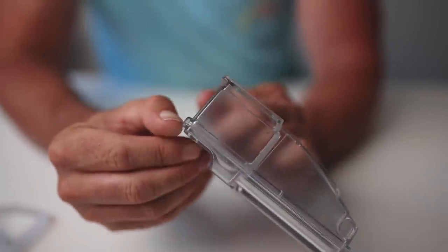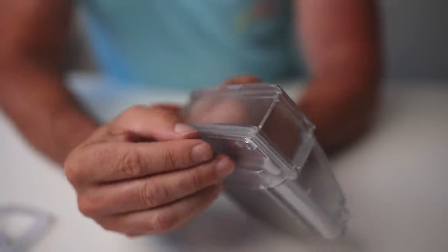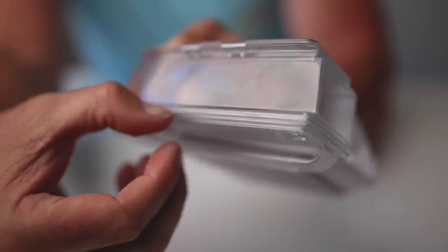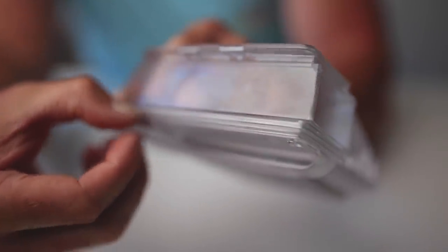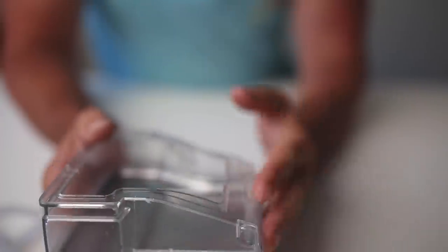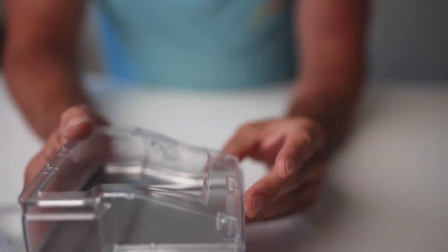The water starts to leak out through this seal. You can run your fingernail down it, you can sort of feel it, and then that's where the water comes out. The reason Janet's not really seeing it during the day is because I imagine she's not heating it up during the day.